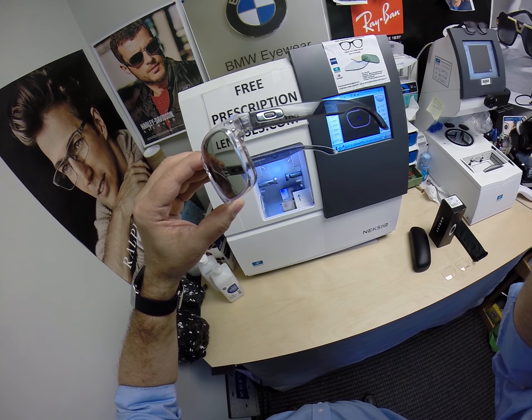Greg in Brambleton, Virginia — thank you for your patience during this Corona scare. While everything took a little bit longer, these will be shipped out today. Thank you so much for the purchase of the Oakley 8156, color 03, the polished clear with charcoal color temples in the 54 eye size, with the Zeiss Photofusion Green lenses and DuraVision Platinum. Hopefully everyone else got a chance to see — I will bring that love and feeling back to glasses.